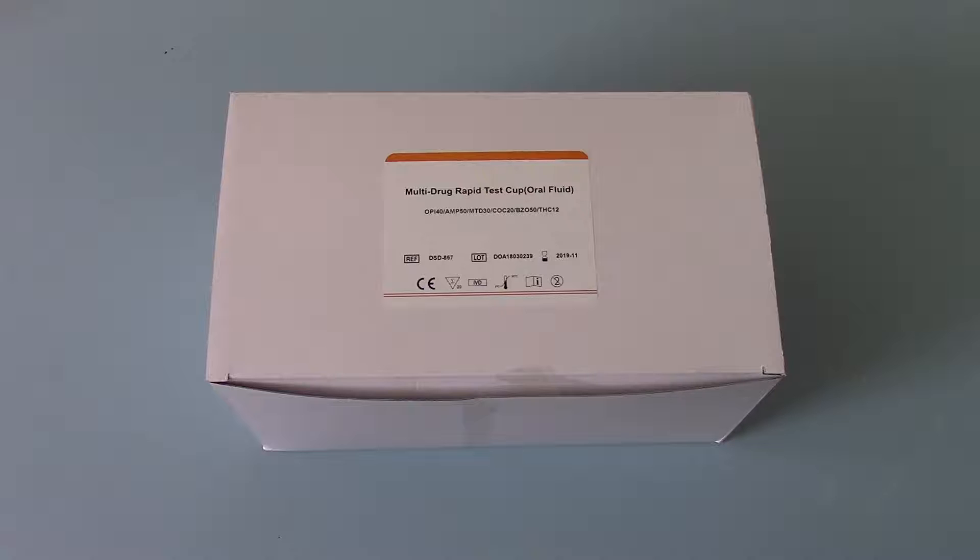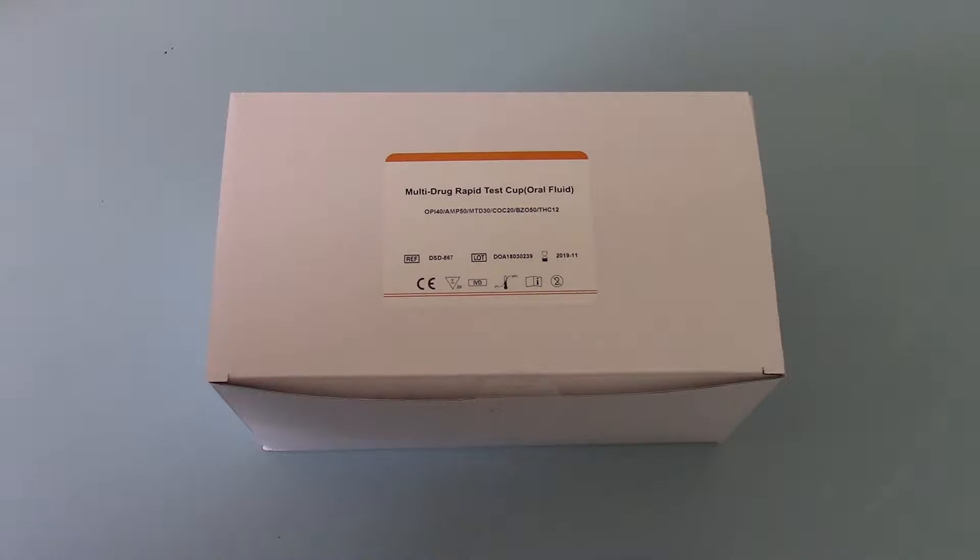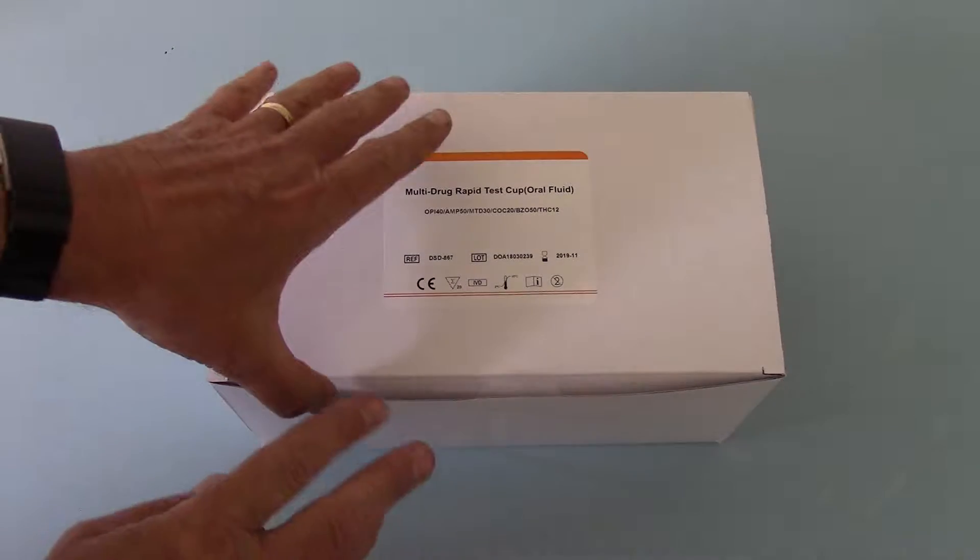So they are all the same test formats, different combinations. This is the standard outer carton. A full standard shipper of these contains 20 of these tests.